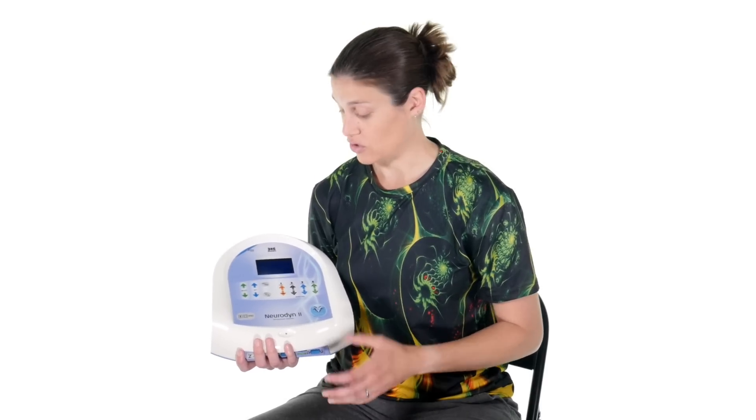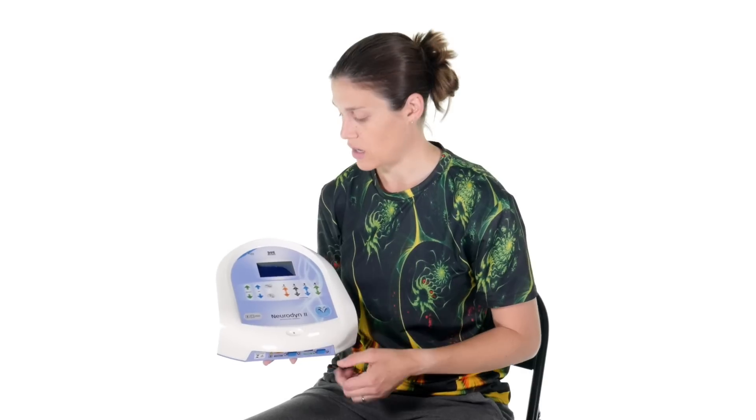Since this is a professional-use unit, you still might want to watch this video to learn about its functions. If it's something you think will help you, you can ask your therapist or healthcare professional to see if it's right for you. I really like these professional units because sometimes handheld home units are great, but if you want that strong muscle contraction for retraining with a professional healthcare provider helping you, these units really deliver that strong current.